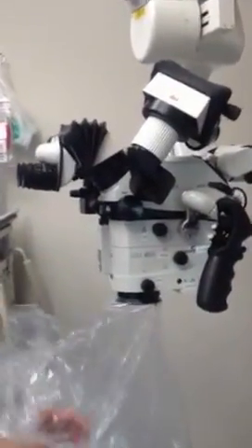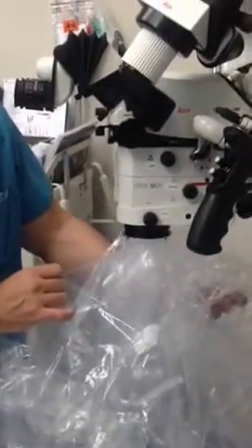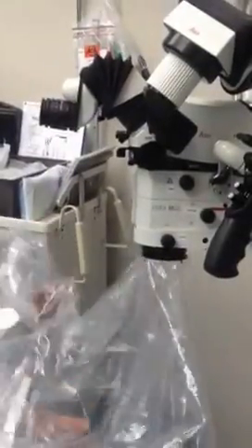Show this plastic — the plastic has to be perfect. This is perfect. See how it's not turned? This is incorrect. So make sure it's not turned when you put it on. As long as it's symmetric and not turned, just go straight on.